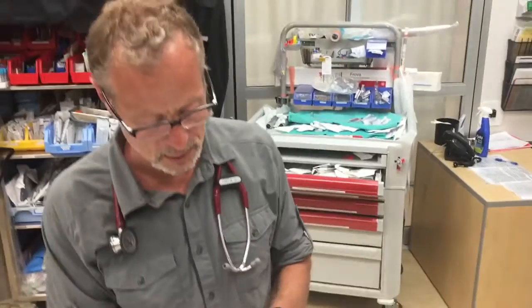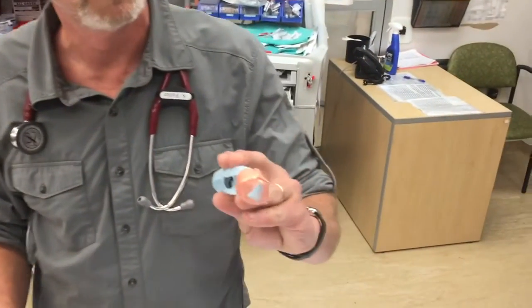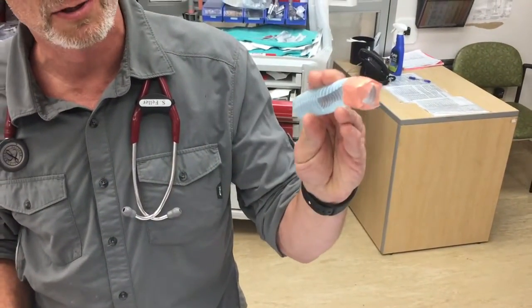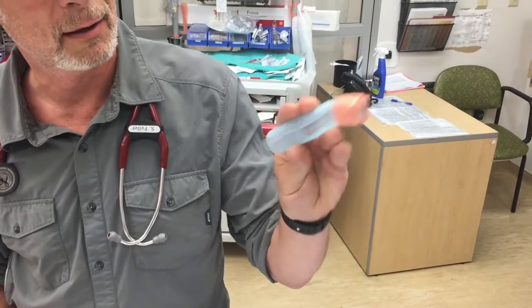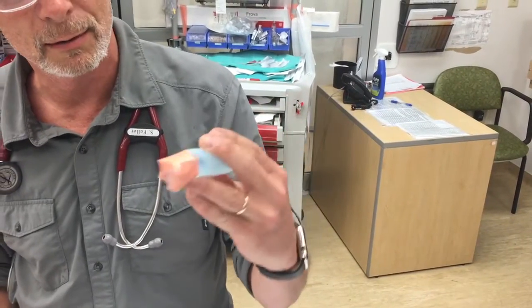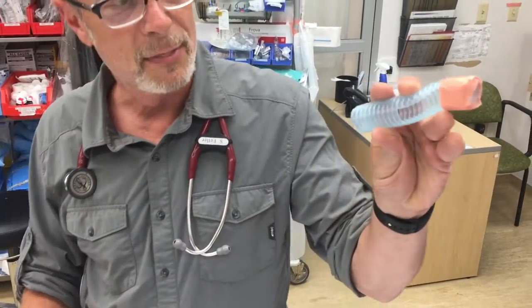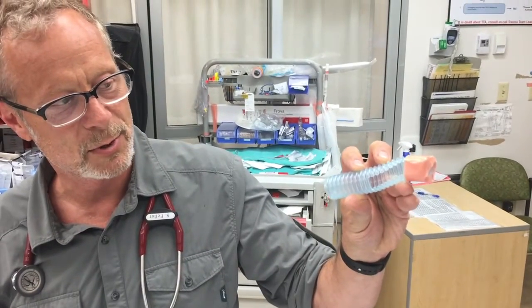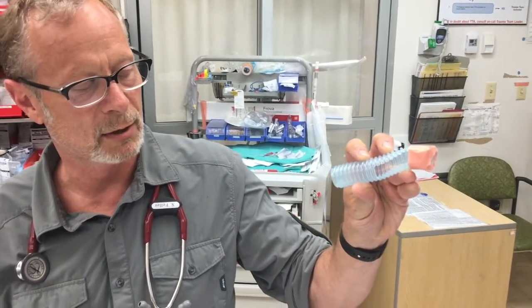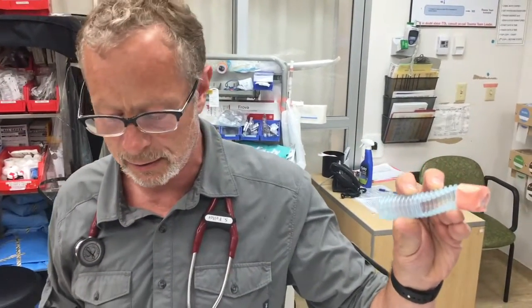The model we're going to use here is just some corrugated tubing. Hopefully you can imagine that that's the glottic inlet. This corrugated tubing that I cut out on the side represents tracheal rings, which you're only going to see anteriorly.